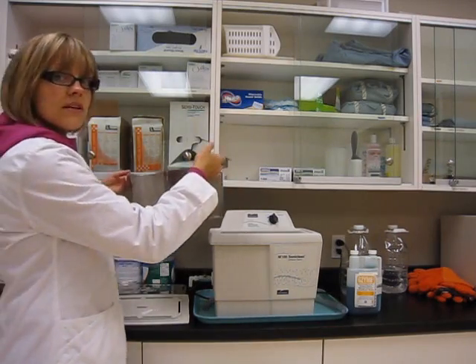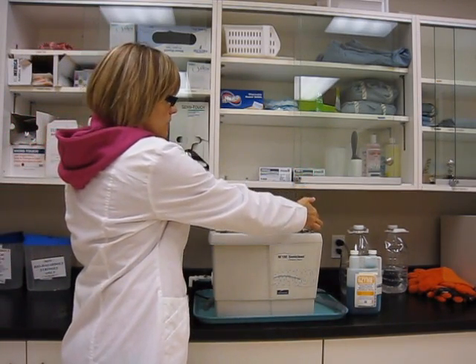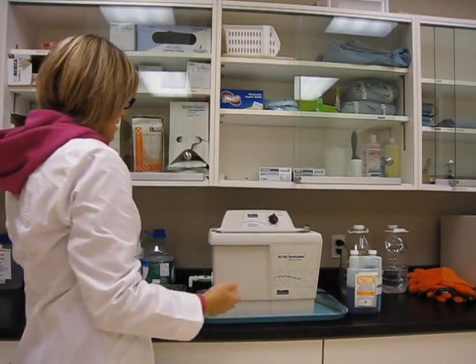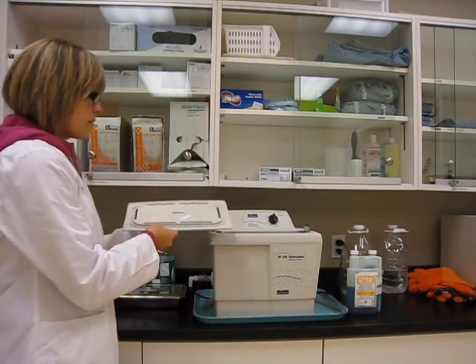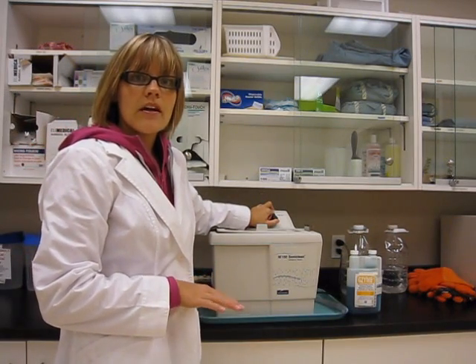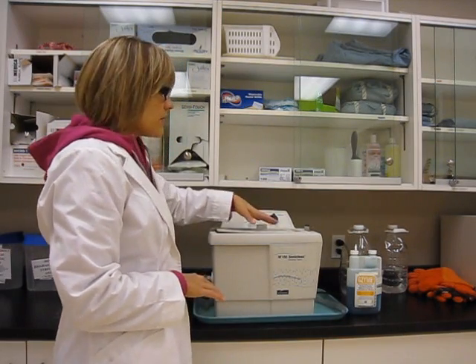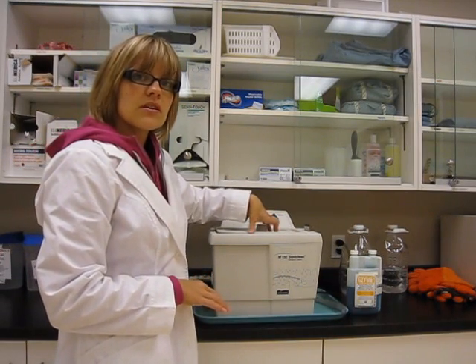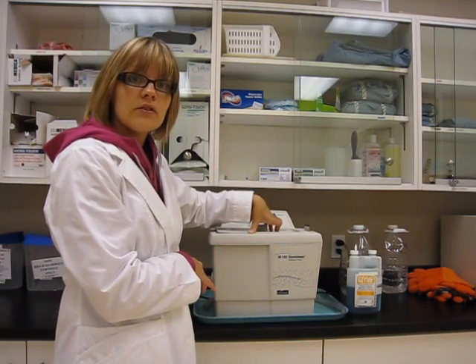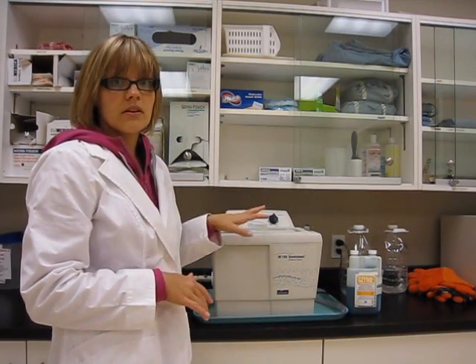You're going to layer them inside your tray and slowly lower your tray back into the reservoir of the ultrasonic cleaner. You can replace the lid. For a cleaning cycle of average instrument load, you want about 10 minutes. When you take your instruments out, if they are still dirty, you can return them back into the cleaner for another 5 minutes. You might also want to check the cleanliness of your solution, because dirty solution is not going to do you any good.